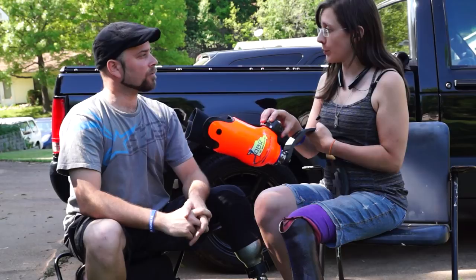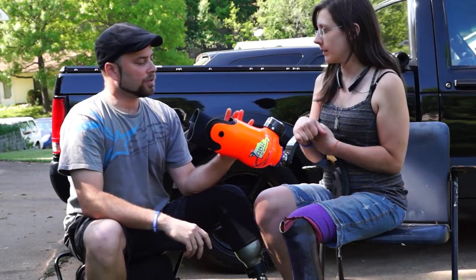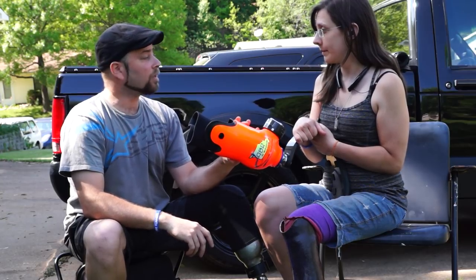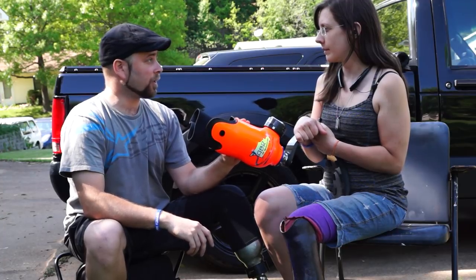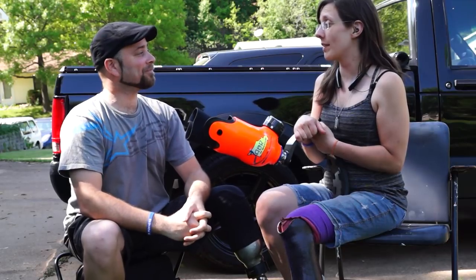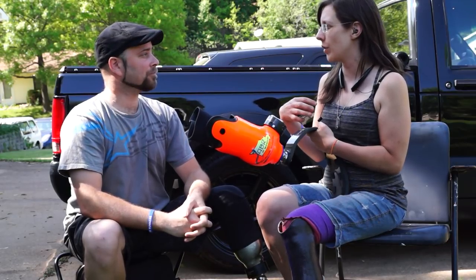What are the benefits of vacuum versus just a regular suction system? Suction just allows you to stay inside your socket, and elevated vacuum takes it one step further by creating negative vacuum inside your socket, which gives you that extra stability that you need. It basically sucks you inside your socket and holds you in more firmly compared to suction.